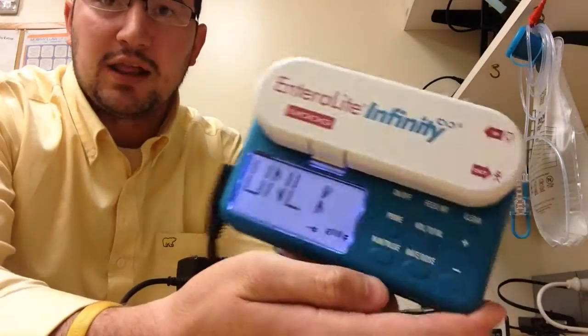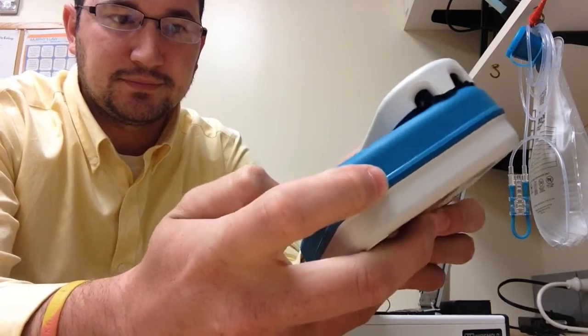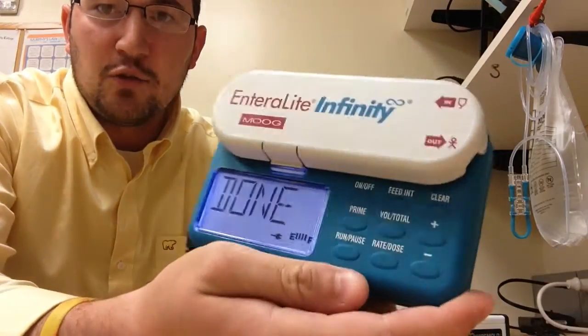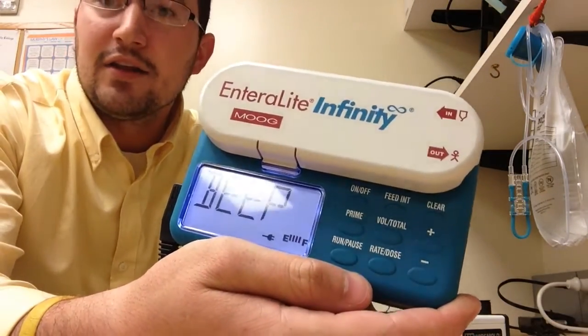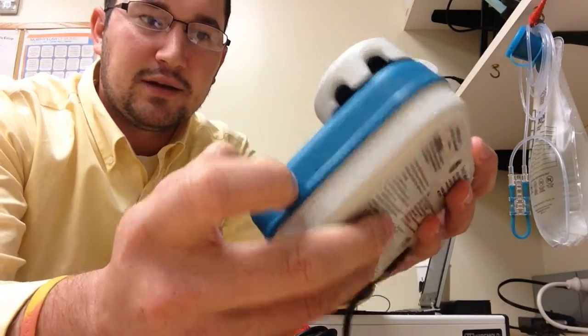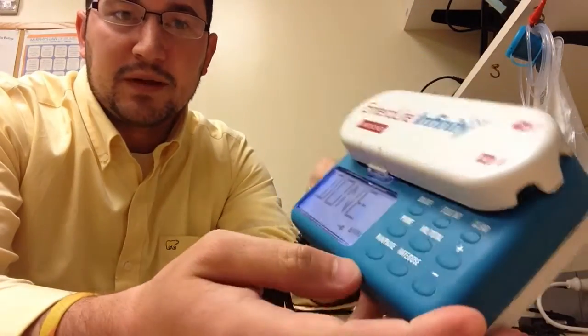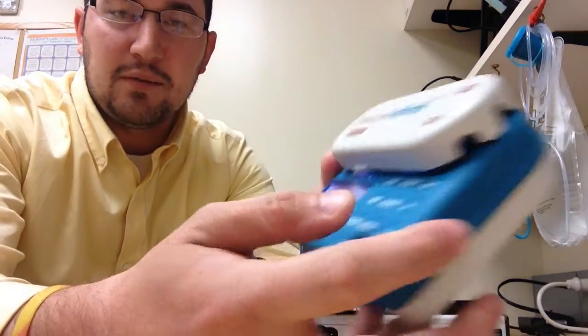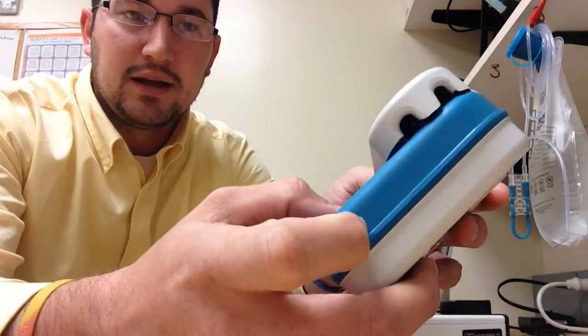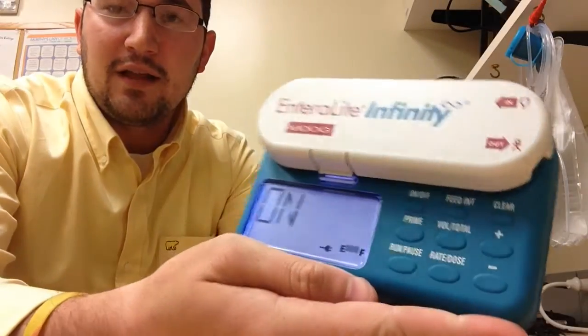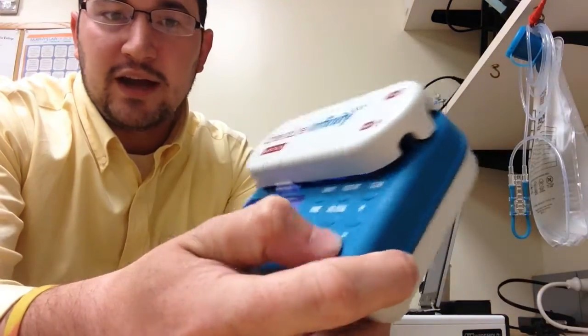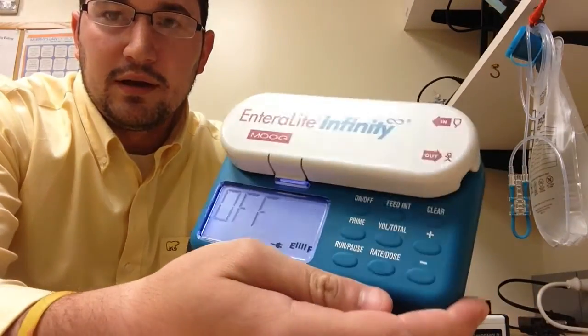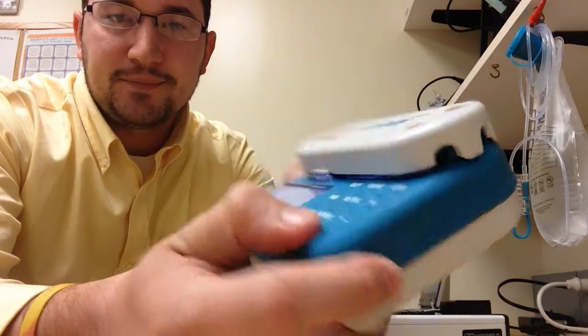Next, you want to keep it on unlocked. And then you want it to say beep when done. The other option is mute when done, but to notify patients using this, it's probably a good idea to keep it on beep when done. And the light on. You can turn the light off as you see here, but we're going to go with light on.